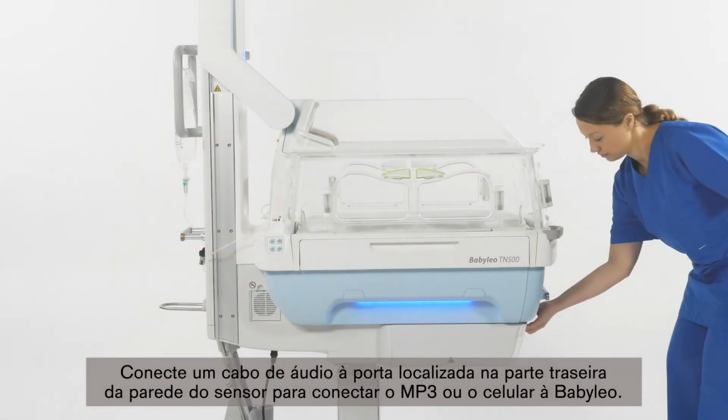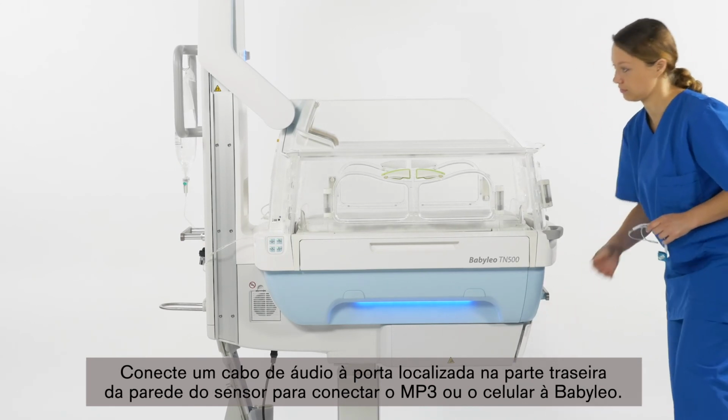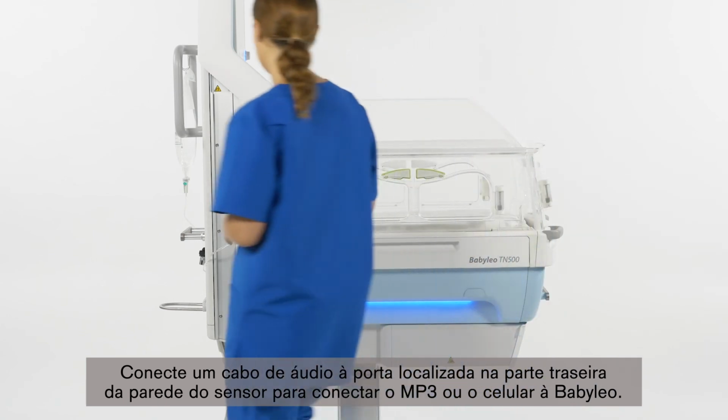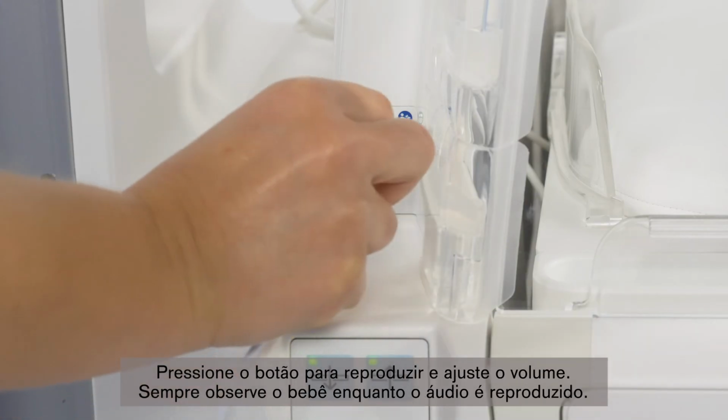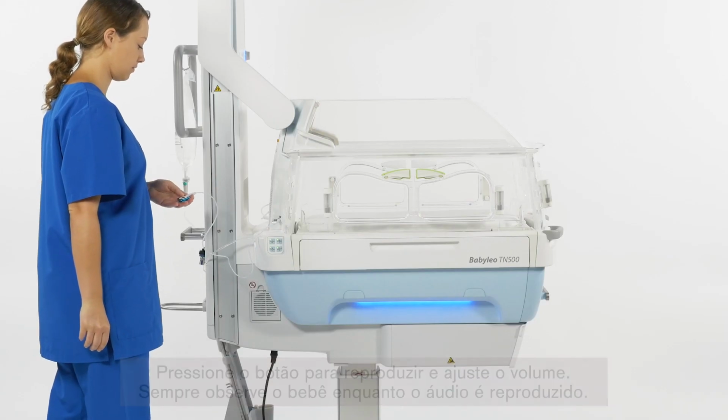Use the audio cable to connect the MP3 or cellular phone to Baby Leo by inserting the audio cable into the audio port on the rear of the sensor wall. Press play and adjust the volume. Always observe the infant while the audio is played.